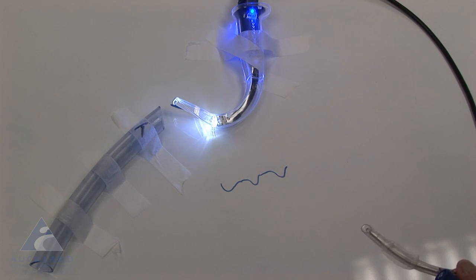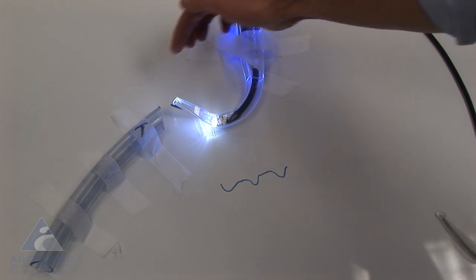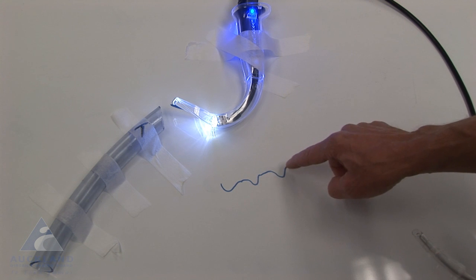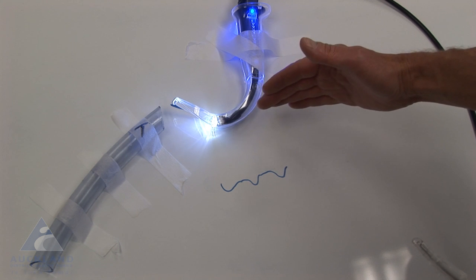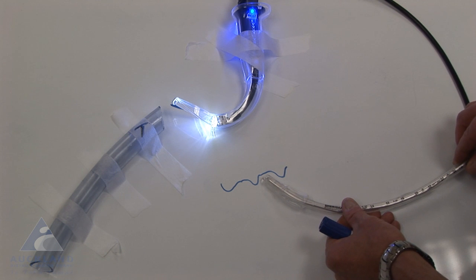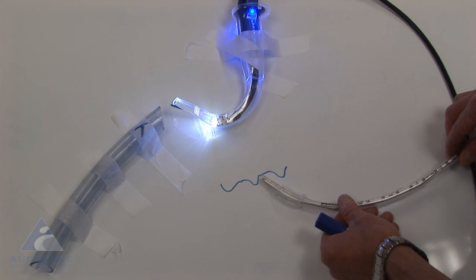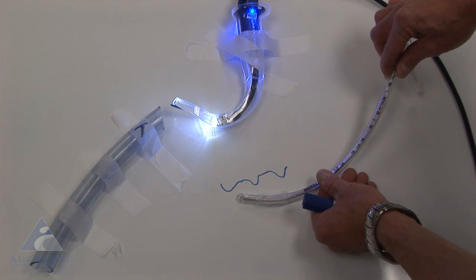Another factor to consider is the precise structure of the anterior tracheal wall. If you just look at this particular area here, this is the anterior tracheal wall, and it's not as smooth as in this mock-up. In fact, it's more like this drawing just here, which is intended to signify a series of tracheal rings as they intrude into the tracheal lumen. And you can imagine an endotracheal tube coming up in this position and not only touching the anterior tracheal mucosa, but touching a tracheal ring and being inhibited by that ring and unable to actually make progress down in this direction here, down the trachea.